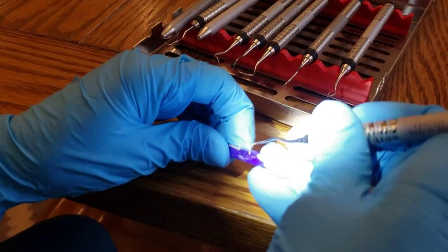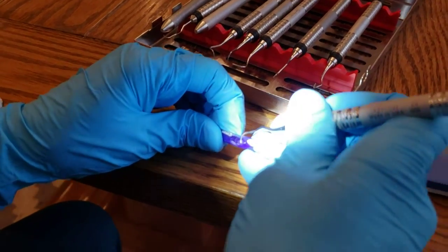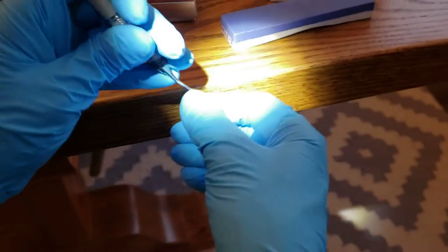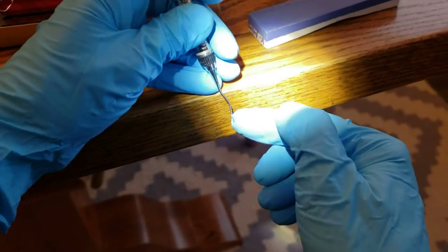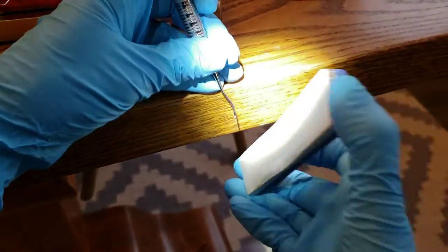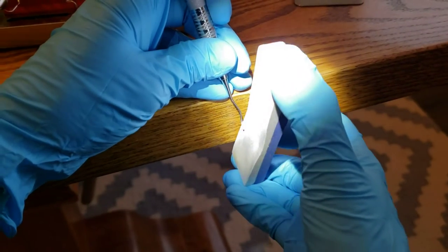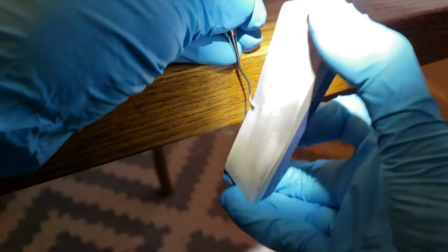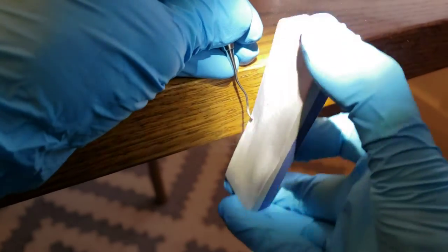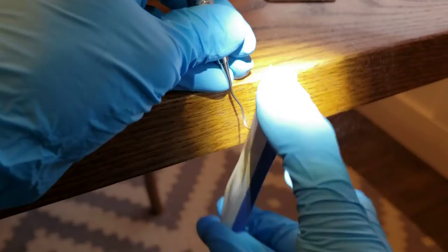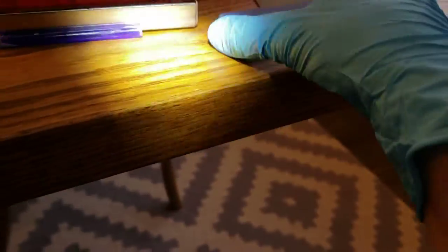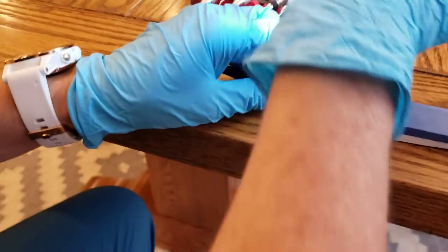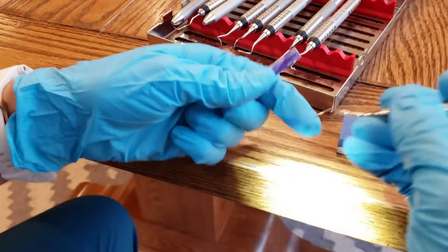So this is my 13-14. And I didn't, well, did I get it? I don't think I got it enough all the way to the tip. So remember that you are sharpening heel to toe. But the most important we know is this very tip that we're going to keep in contact with our tooth. We want to make sure we've got that tip really sharp. So that's good. You can hear it. You can hear it grab on when it's real sharp.